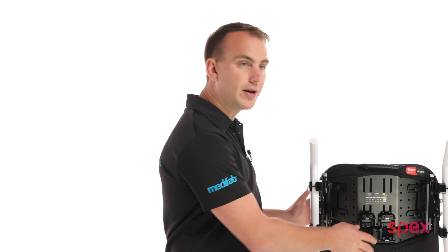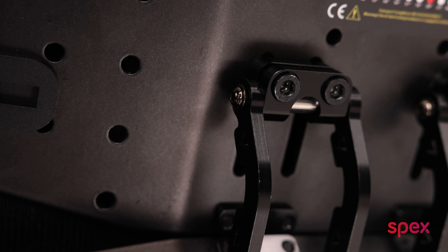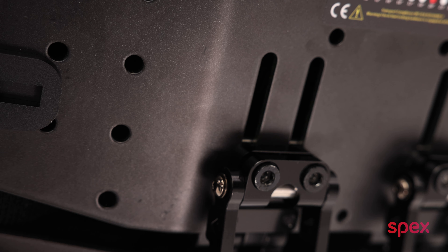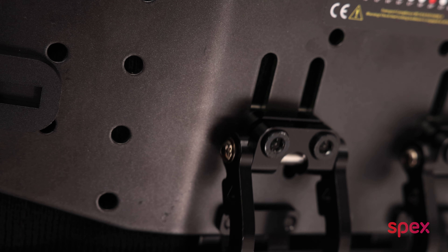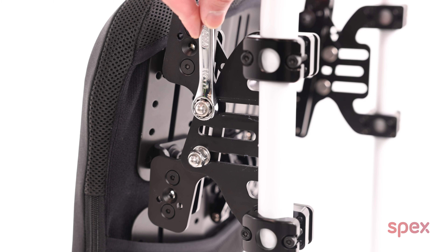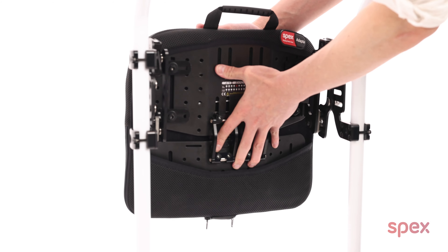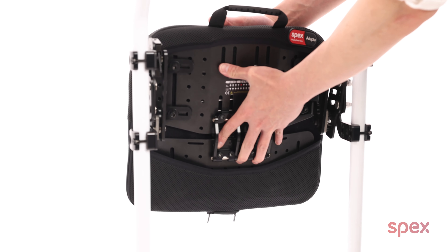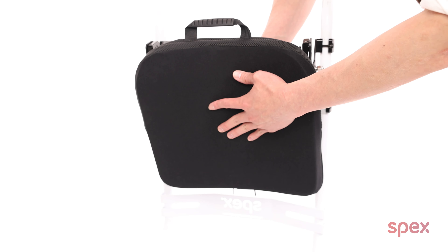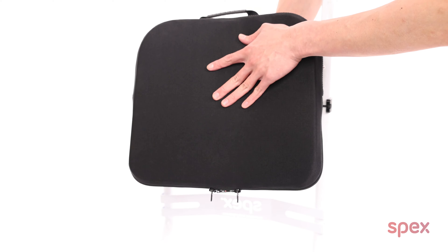Configuring the system is simple. At the bottom adapter point, simply loosen these bolts here with a 5mm allen key until it allows the componentry to slide in the slot. Now that the lower section is loose, I will use the mounting hardware to position the central section in my desired position to support the lumbar to lower thoracic section of the spine.